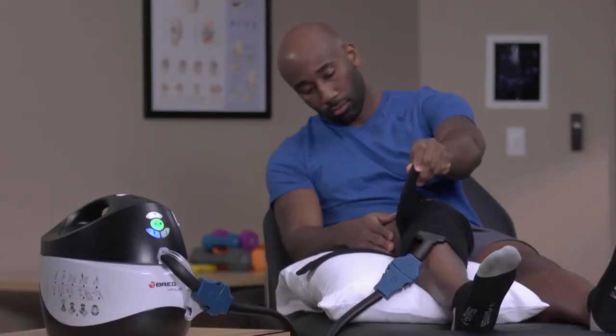Your doctor will provide instructions regarding how many days and hours per day to use your V-Pulse as well as how frequently you should take breaks and inspect your skin.